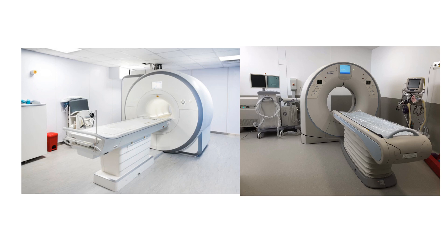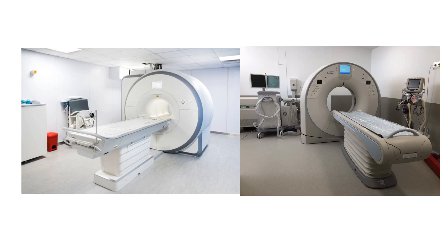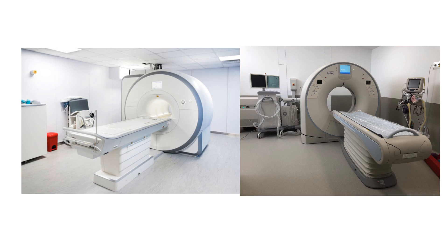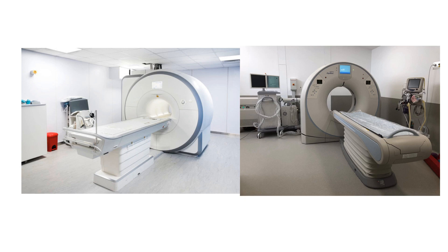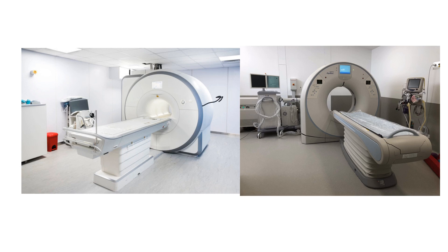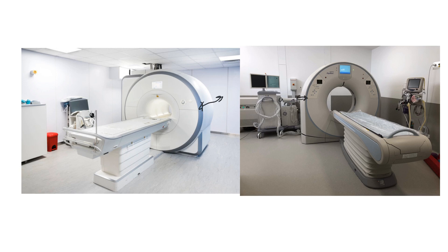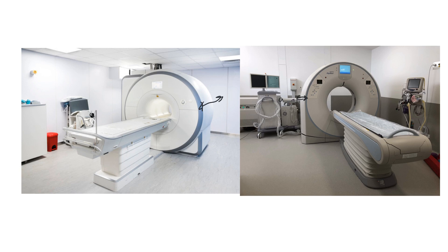Now, grossly, CT scanners and MRIs can look fairly similar. On the right-hand side, we have the Southpaws CT scanner, which is a 16-slice Toshiba machine. On the left-hand side, there's an image of an MRI scanner. The big difference between the MRI and the CT is the depth of the gantry. Our gantry is probably about 500 or 600 millimeters thick, whereas the gantry on an MRI can be up to a meter and a half to two meters thick.